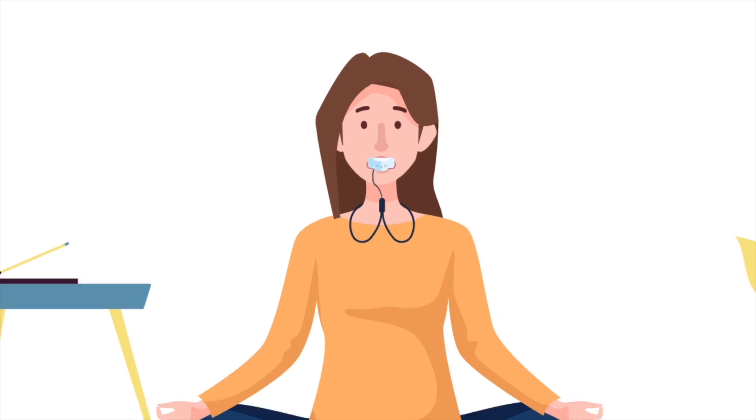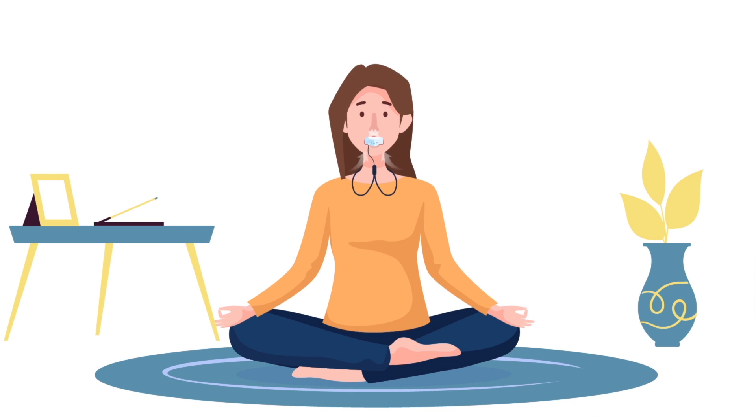This pattern of breathing is also very helpful in reducing anxiety and calming your nervous system down. So you can use PepBuddy for mindful breathing and meditation and anxiety reduction as well.